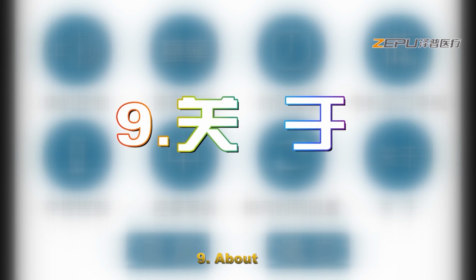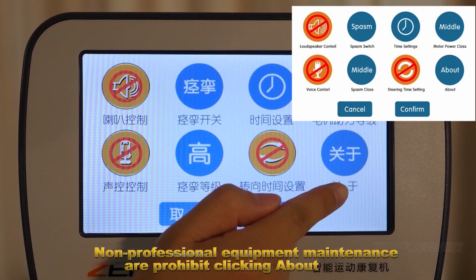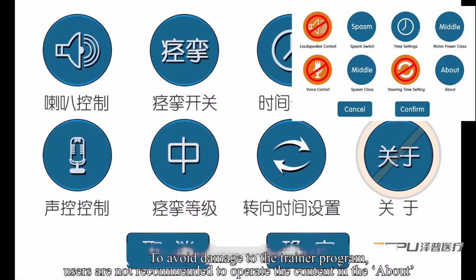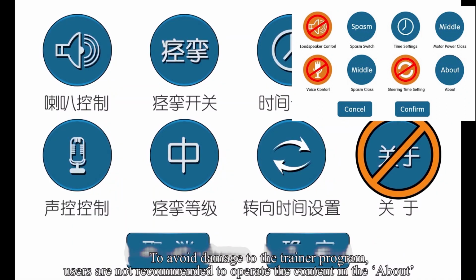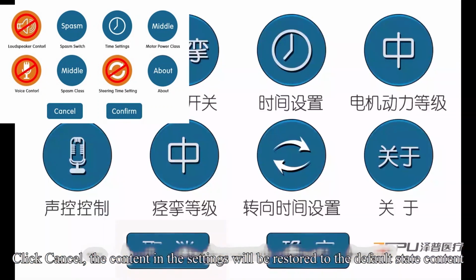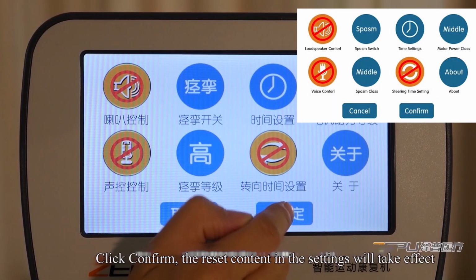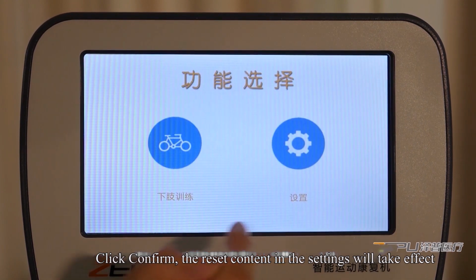9. About. Non-professional equipment maintenance or prohibit clicking about. To avoid damage to the trainer program, users are not recommended to operate the content in the about. 10. Cancel. Click cancel. The content in the settings will be restored to the default state content. 11. Confirm. Click confirm. The reset content in the settings will take effect.